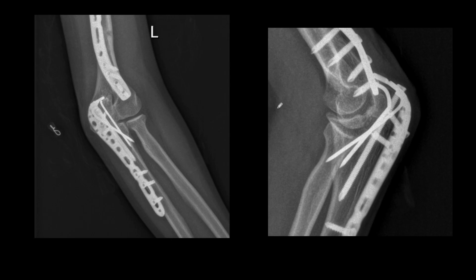This was the follow-up radiograph at six months. You see everything has healed — the radiograph is looking good, the comminuted part has also healed, and this proximal fragment has not displaced. The K-wires are also stable because they are contained under the plate and are not going to come out. So ultimately the outcome was satisfactory both radiographically as well as functionally.